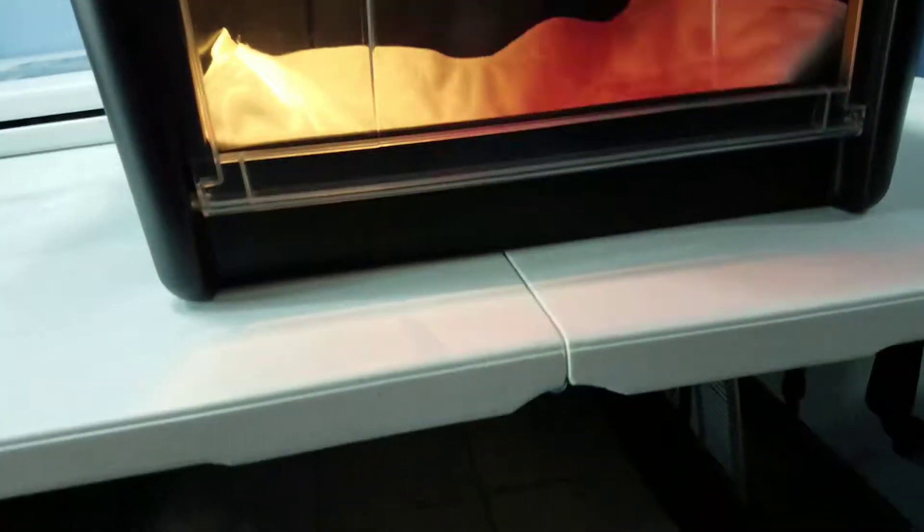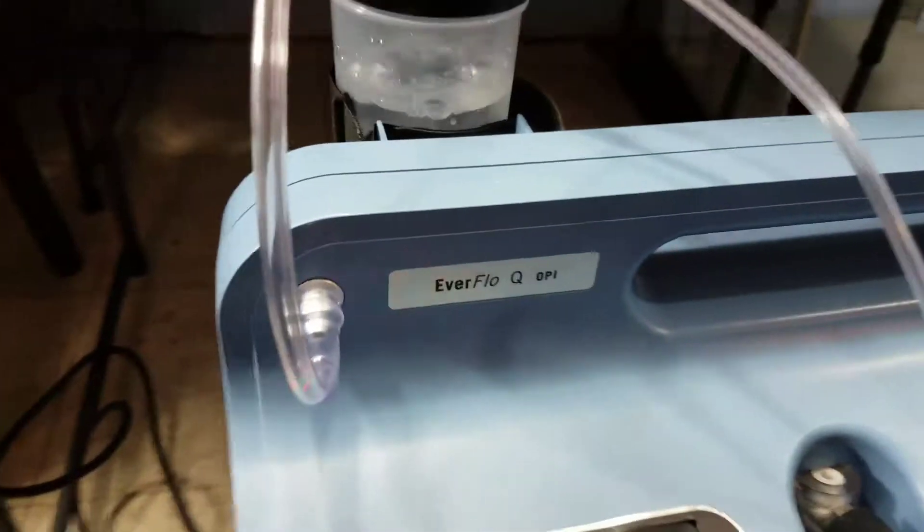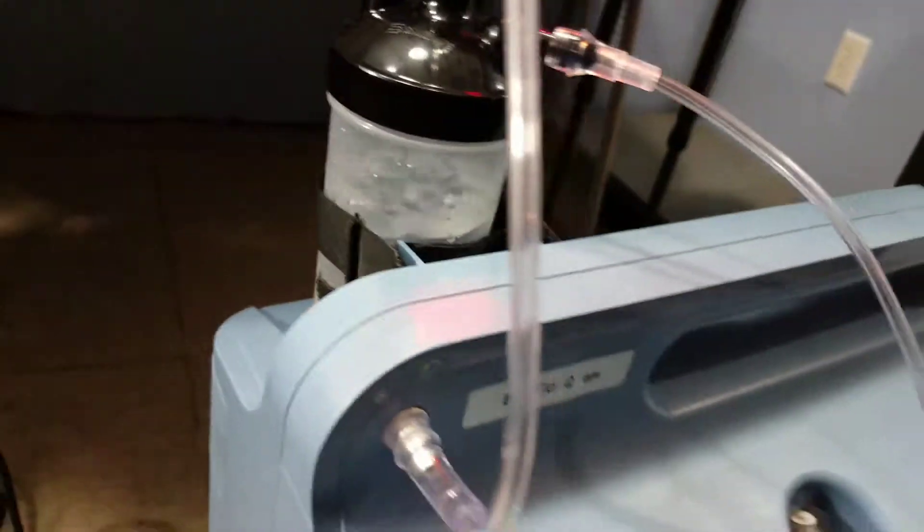So I've now got that pushed on firmly. You want to make sure your oxygen tubing is running into your oxygen adapter for your incubator and we are going to turn this thing on.